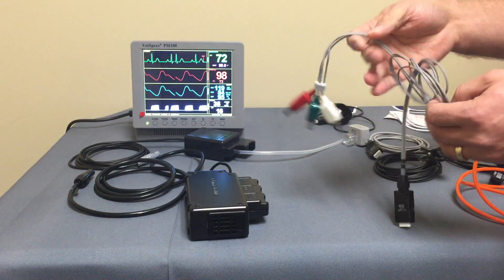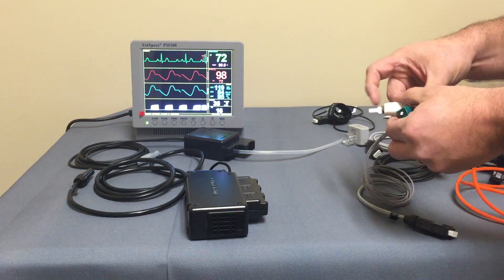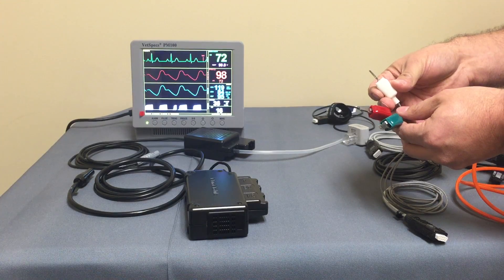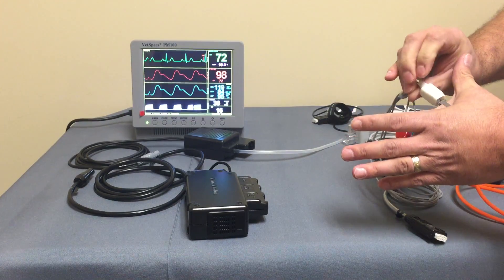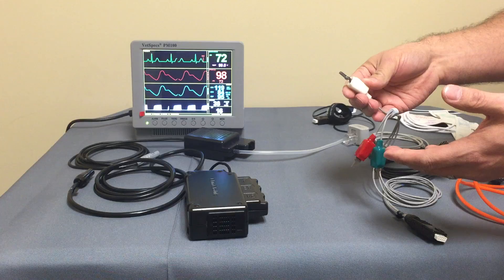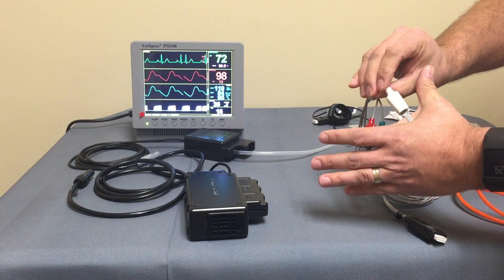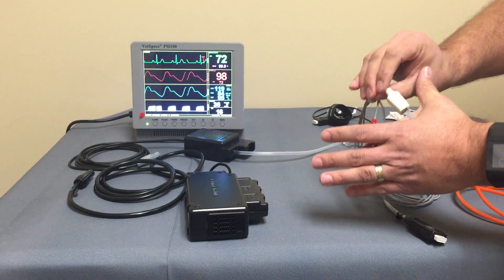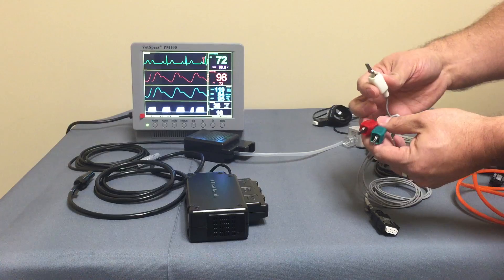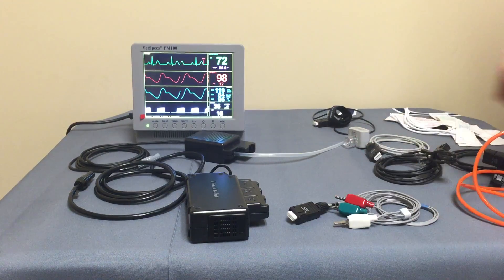These are your ECG lead wires. A minor innovation but certainly practical: in the veterinary industry, traditional clips have teeth — what they call alligator clips. VetSpecs has gone to a true flat clip with nice spring intensity but no teeth. So they hold on well but don't hurt the patient, making them much more tolerated for the awake patient, and even under anesthesia there's no trauma to the patient's skin.